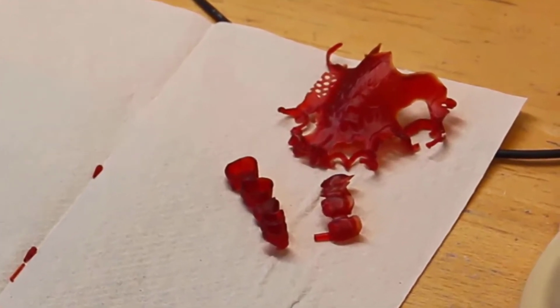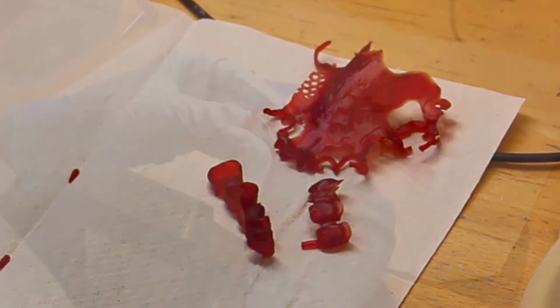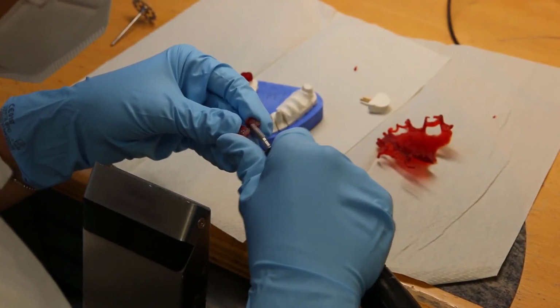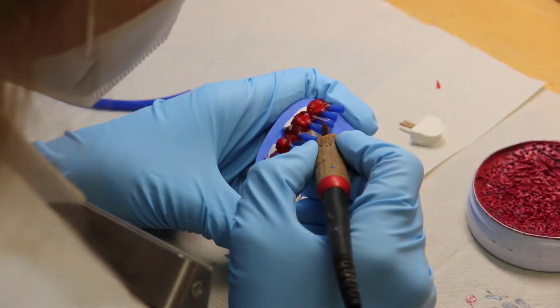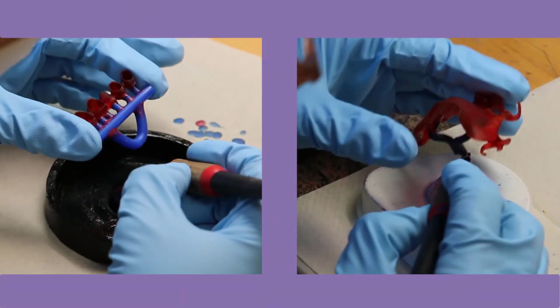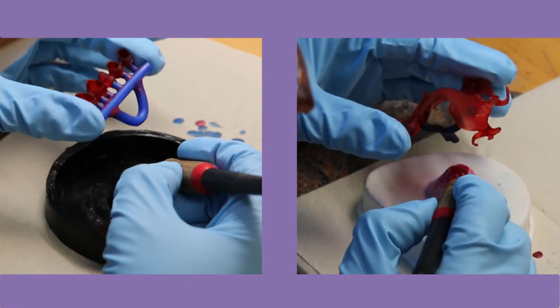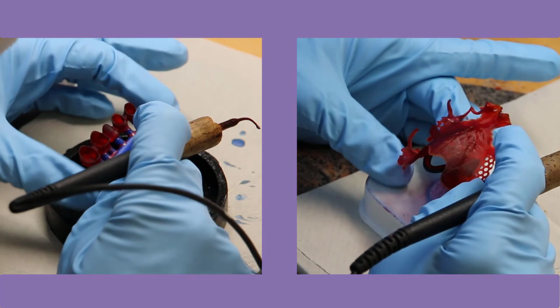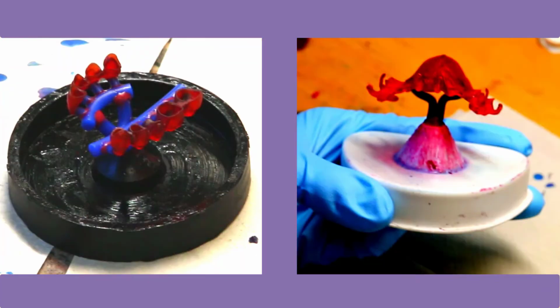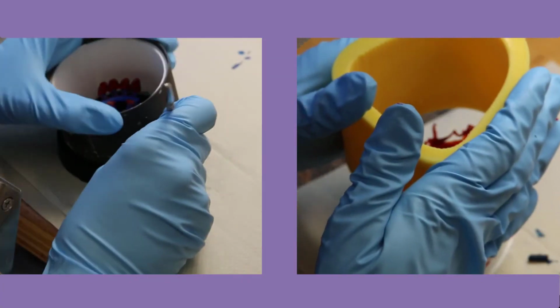For further processing, disconnect the supports. Grind the supports with a carbide cutter. Prepare the objects for your casting system with a casting funnel and the corresponding base former.